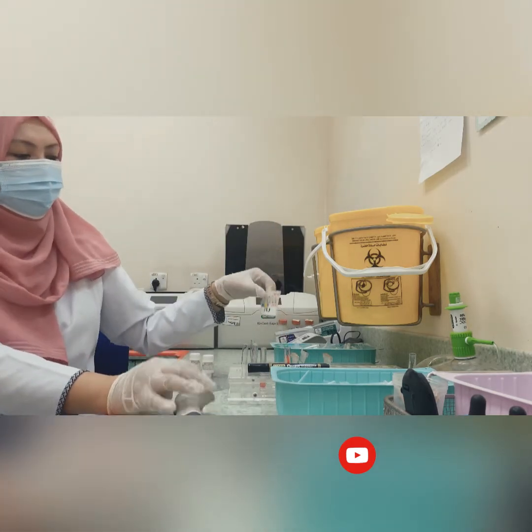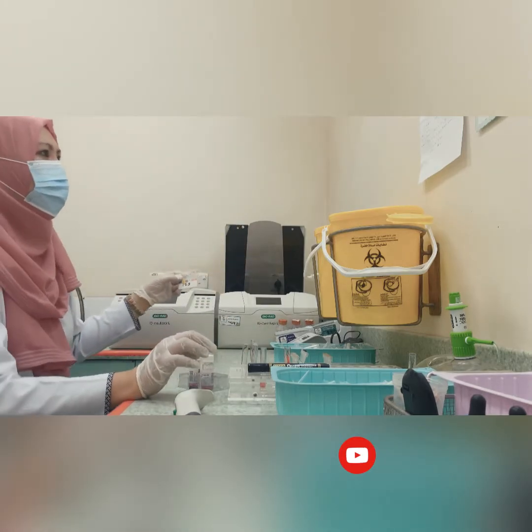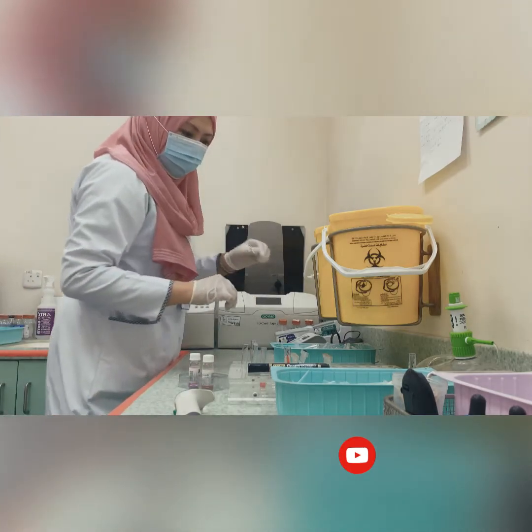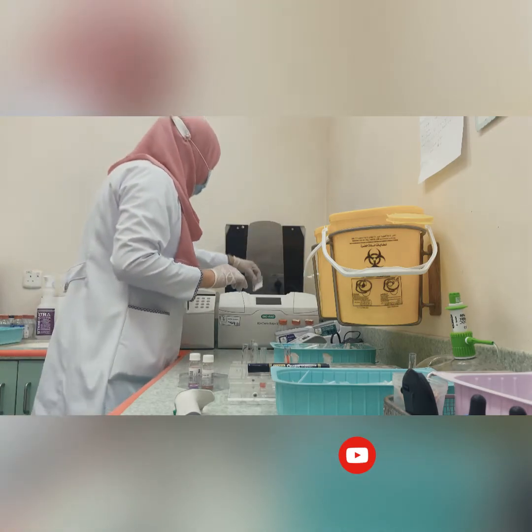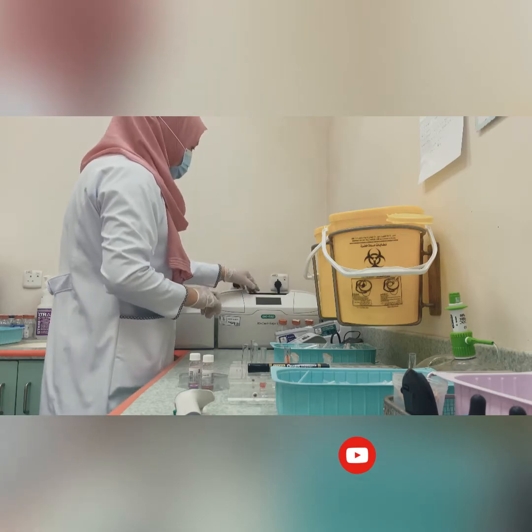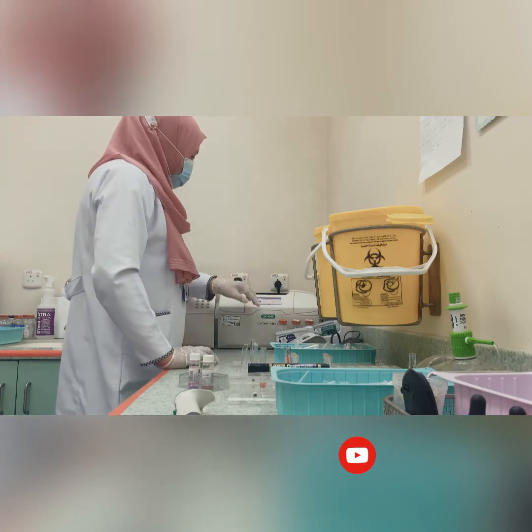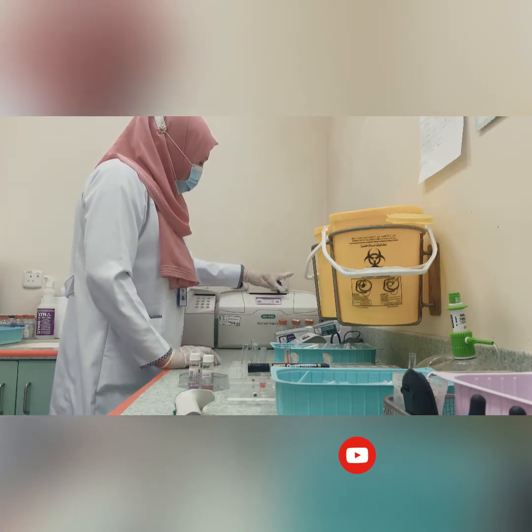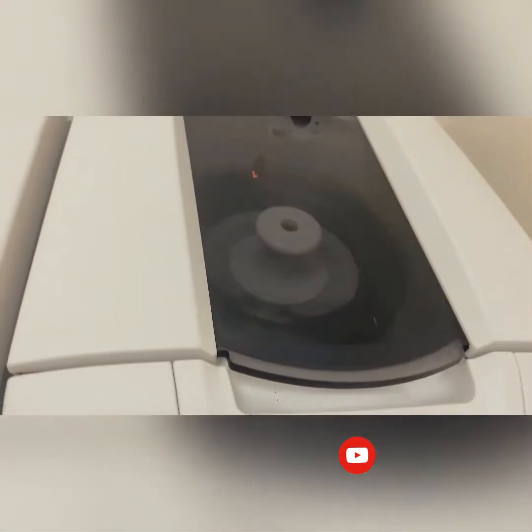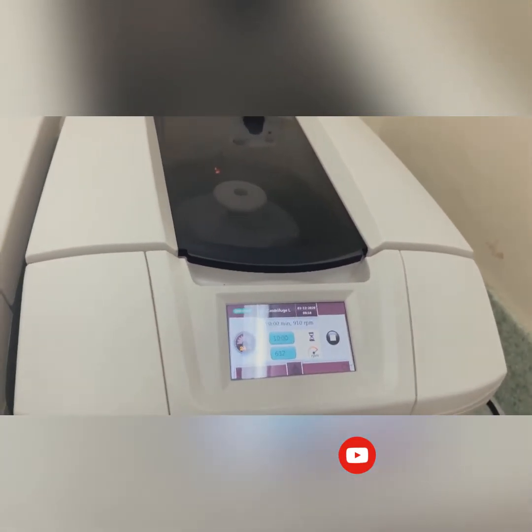This cell suspension comes from the patient. Now you will centrifuge for 10 minutes. Use anything to balance the centrifuge. It is now being centrifuged, so after 10 minutes we will read the result.